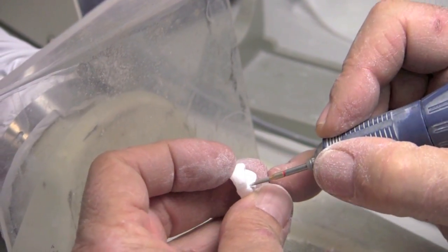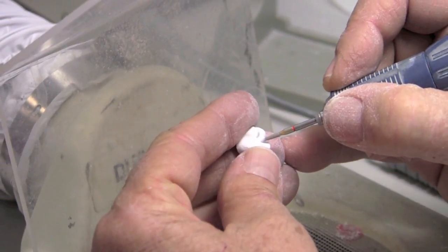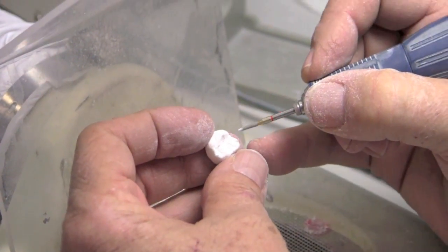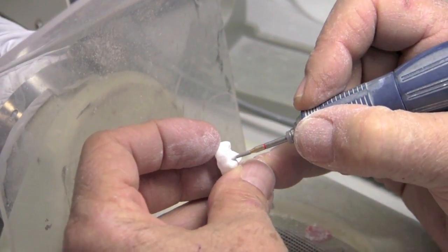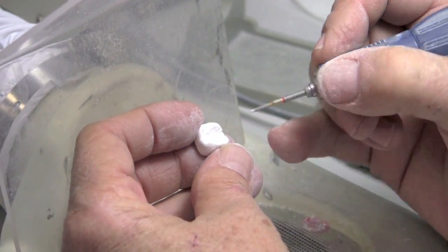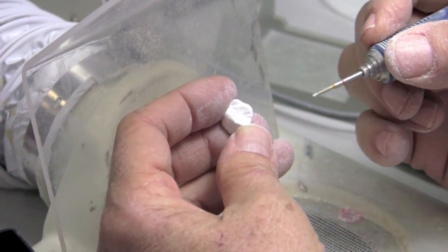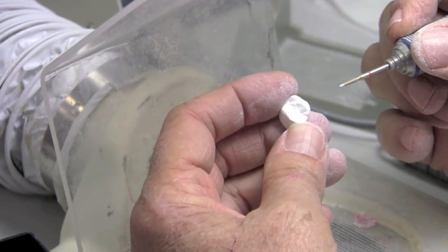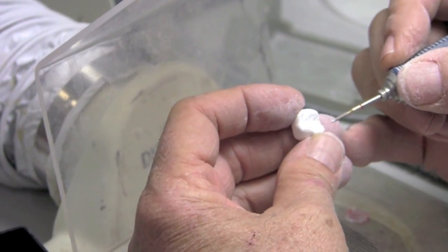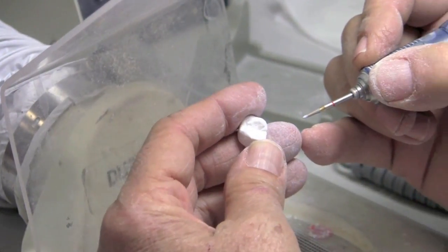And I don't really feel the need to run the little carbide into these because typically they're not really sharp grooves. They're more like contour changes. At least I think that works out pretty nice. And really, there's not much to do here. Even this step isn't really all that necessary in every case. But I do it because I'm kind of that way. And really, I just want to make sure that I enhance my little subtle secondary anatomy areas.